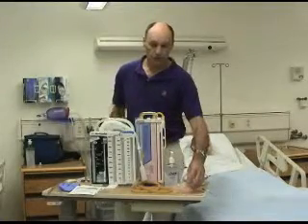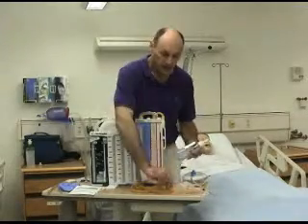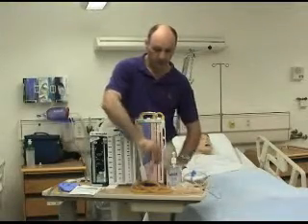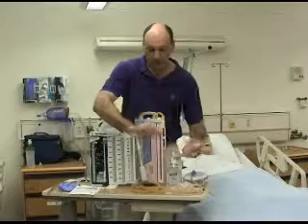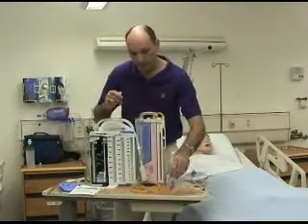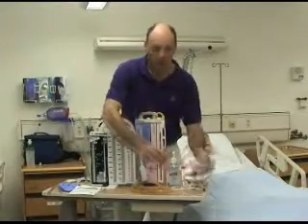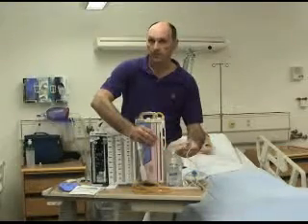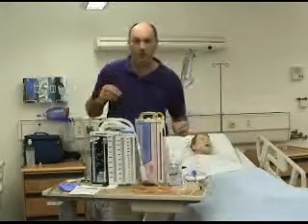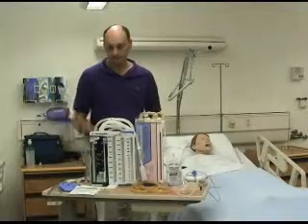For the wound drainage system, what you can do is take a little cup and squirt in some hand sanitizer or some other base liquid, and then you can squirt in a little bit of food coloring and then mix it together, and then take your syringe and squirt it into the particular bulb to simulate drainage from the wound. Now I'll tell you how I set up each one of these with the patient simulator.